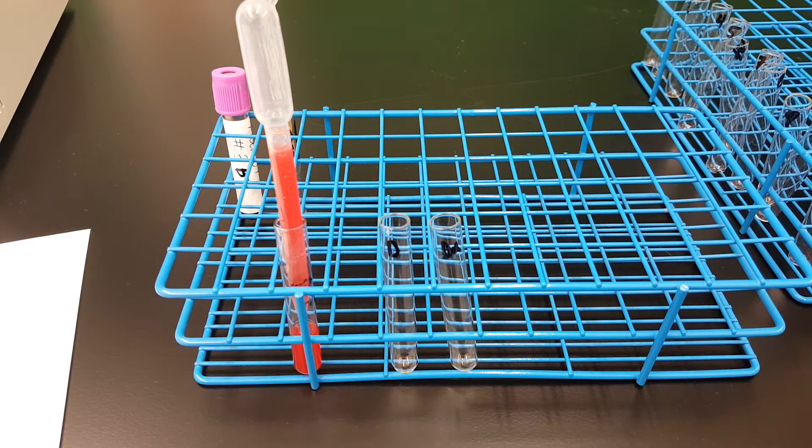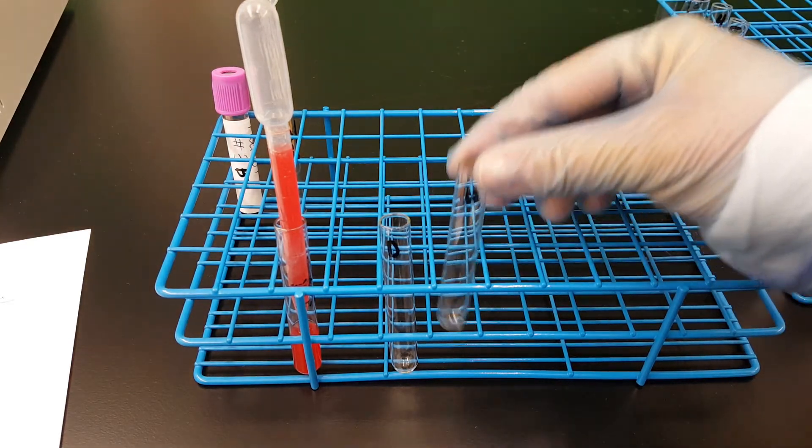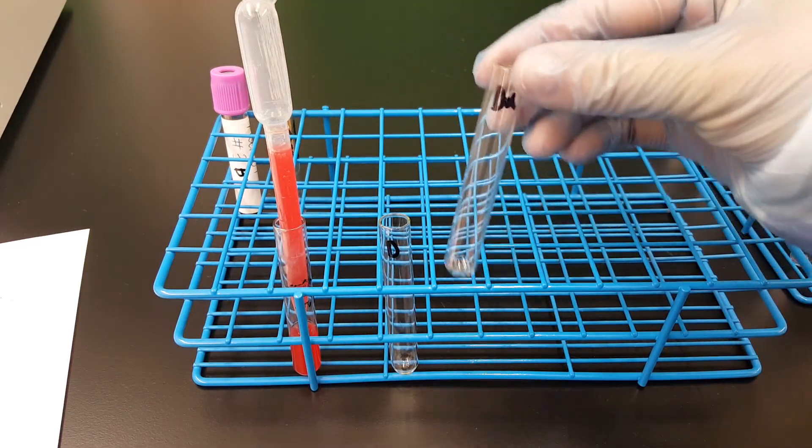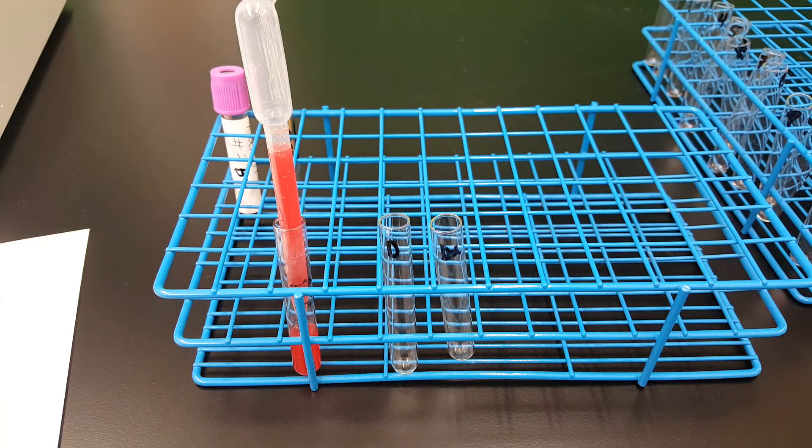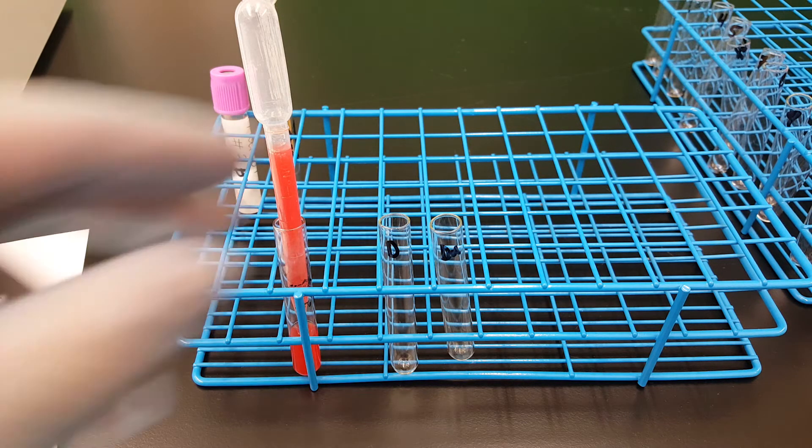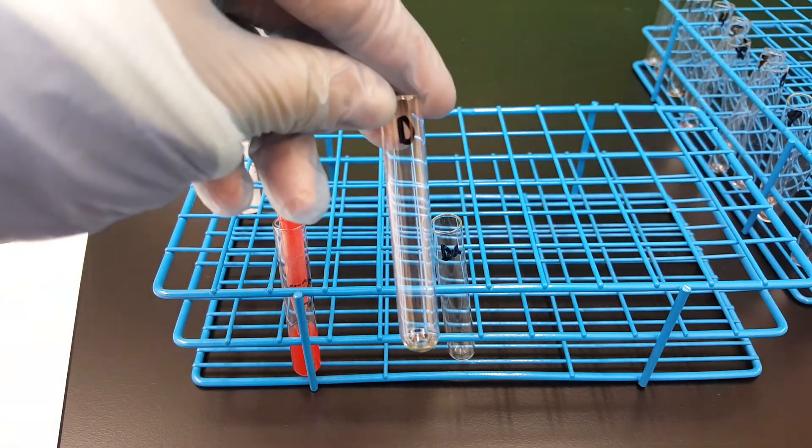But what we're going to do is actually do the D control, which is going to be here. This is the D control reagent, which actually has every additive in it except the anti-D antibody, like the RH testing did.